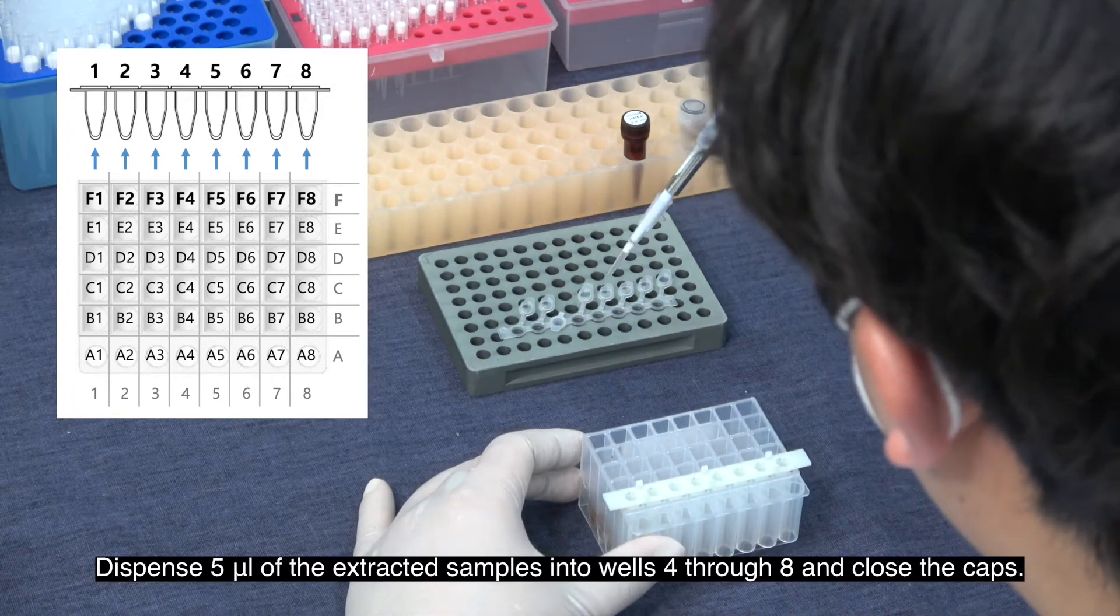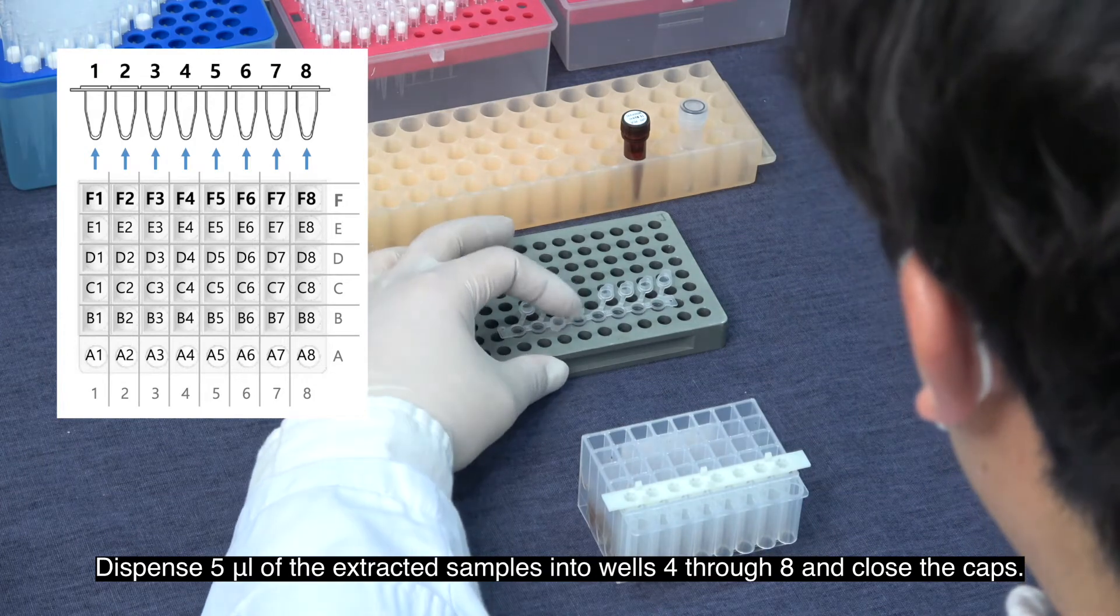Dispense 5 microliters of the extracted sample into wells 4 through 8 and close the caps.